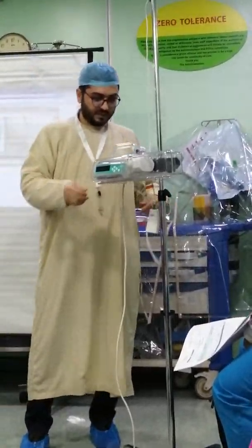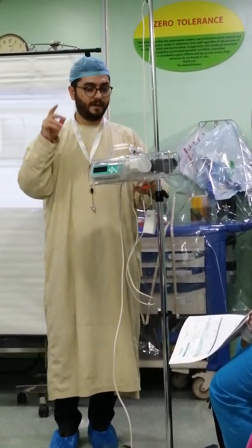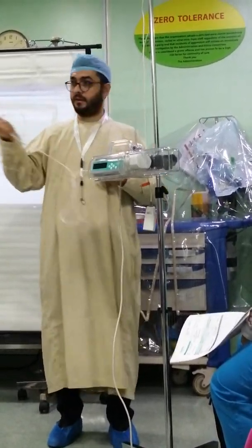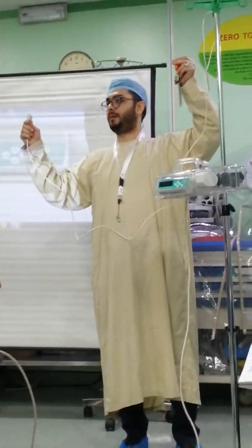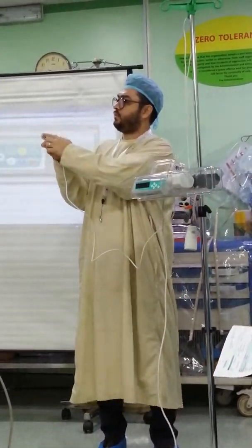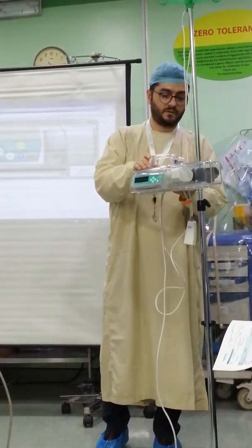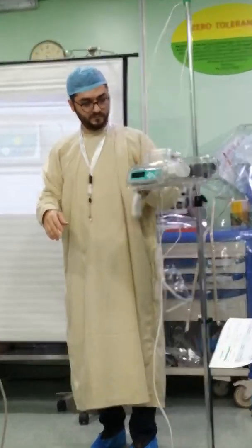To charge it, you have to connect to the back, like the infusion pumps you already have. The only extra thing is that before the charger you will have this PCA button — the one the patient will be pressing. You connect this to the pump, and to this you connect the charger at the power point.